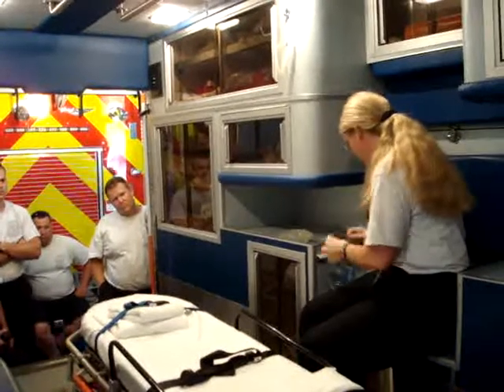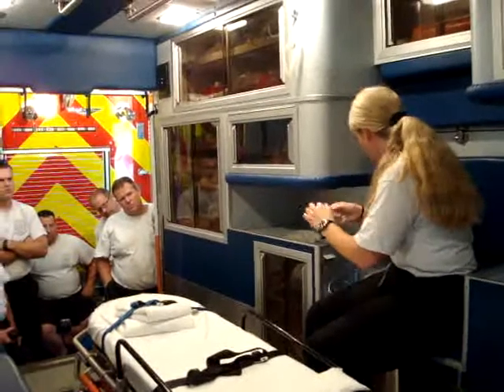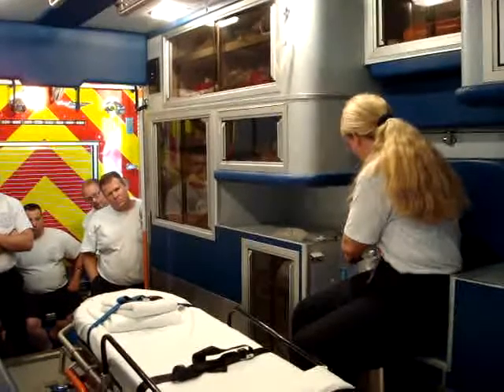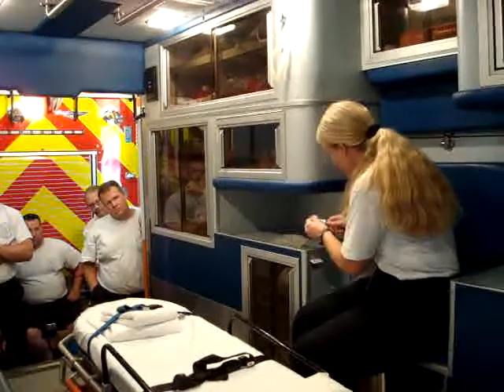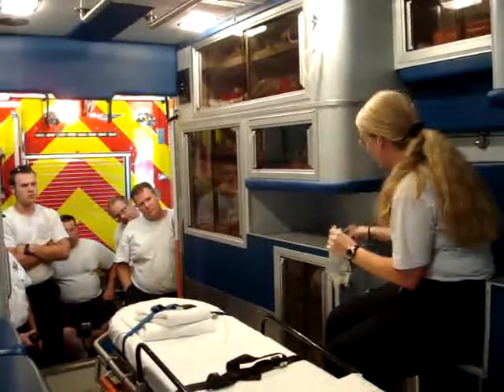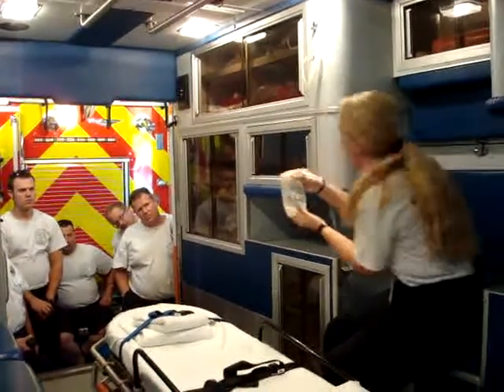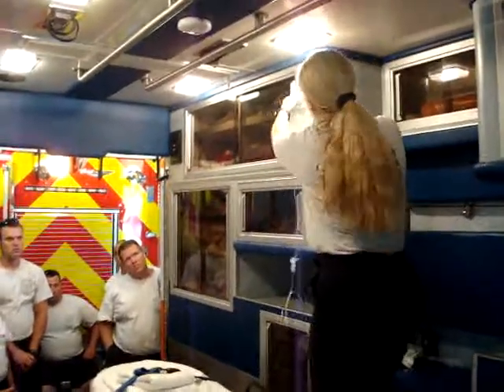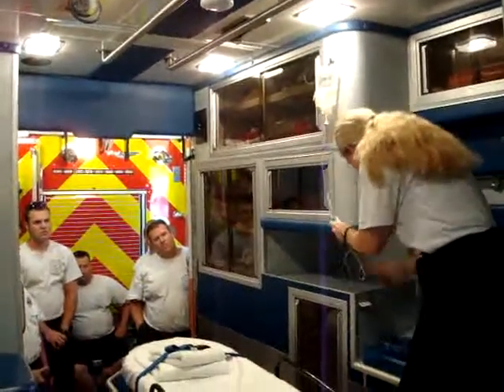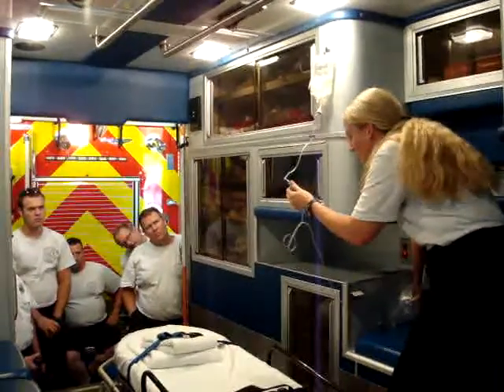Save your dark blue cap. Put it together. In that trash bag that I made over here, put the end of the bag. Then you're going to take the spike, pull off the blue — everything that's blue is sterile. You put this into the bag, flip it, and hang it up. Secure it. The fluid is now rolling through the tubing, letting all the air out. You don't want any air in your tubing.